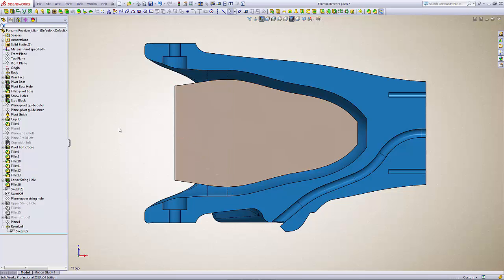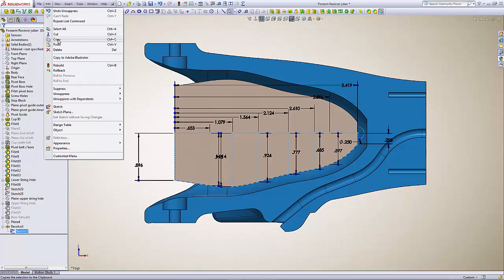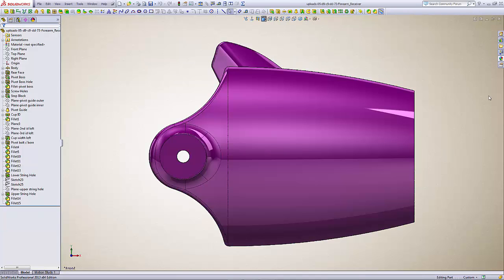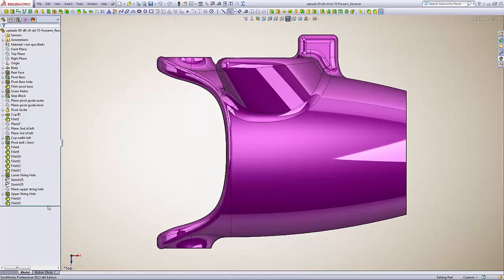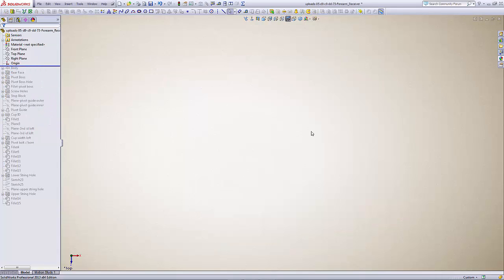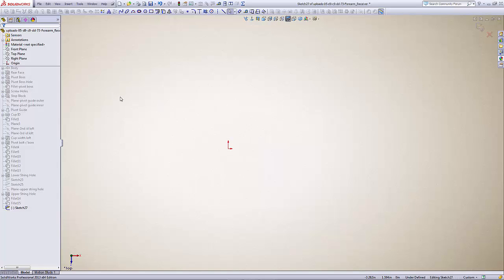I'm going to show you how to take the original cup, draw out your recipient's dimensions, put them in there, and then modify the cup to fit. Instead of drawing everything out fresh — which you'll need to do for yours — since I've already got the drawing done, I'm going to copy this sketch. I'll go to Edit, Copy, and Control-Tab over to the other file. You'll need to roll the model clear back to the very beginning — before any sketches, no anything — then click on the Top Plane, select Sketch, and paste.